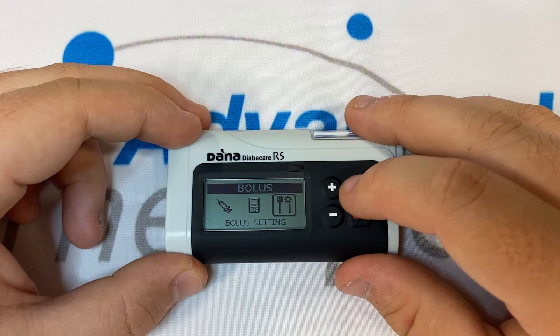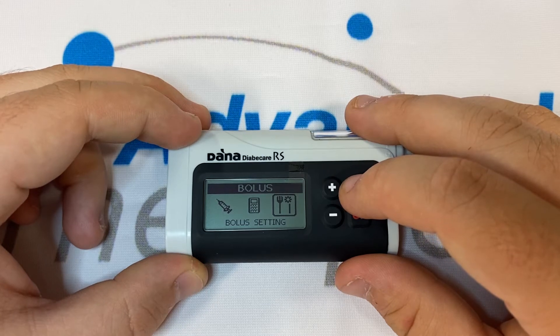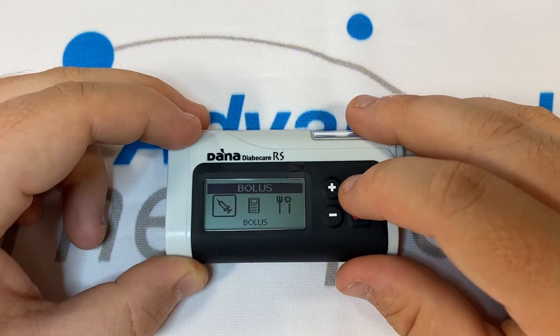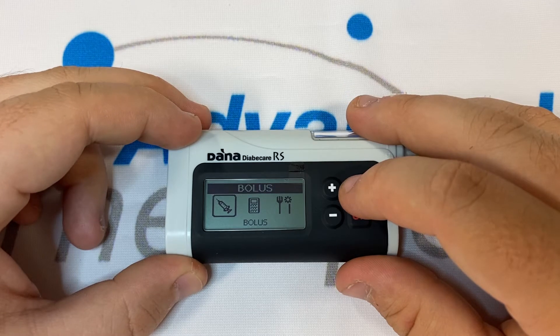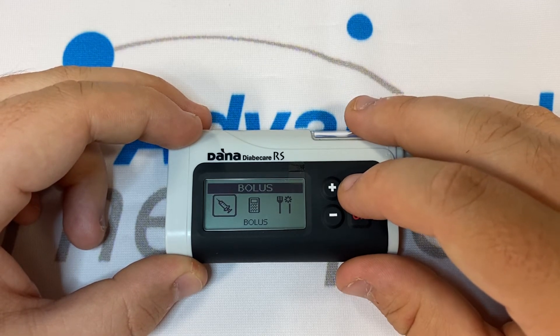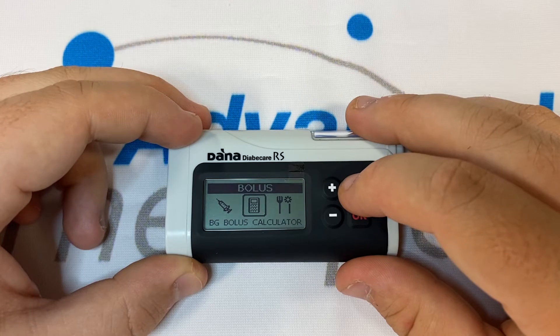Having already programmed the bolus settings, today we'll explore the calculators. There are two calculators that we've enabled inside of the pump — one is for carbohydrates only and the other is the full BG bolus calculator.